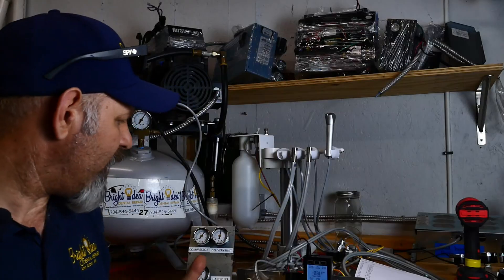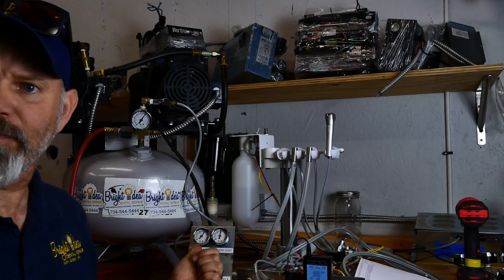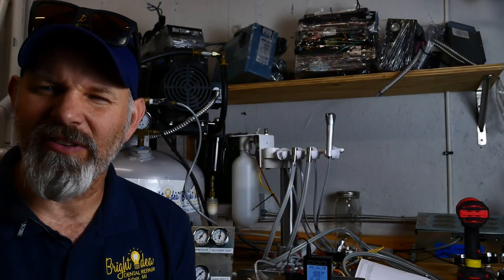Specifically, what I was trying to do was demonstrate that when the compressor PSI is running between about 85 and 105 — like 100, 105, 110, 115, something like that — it should never drop down below 80.